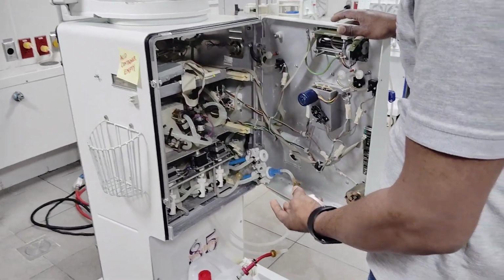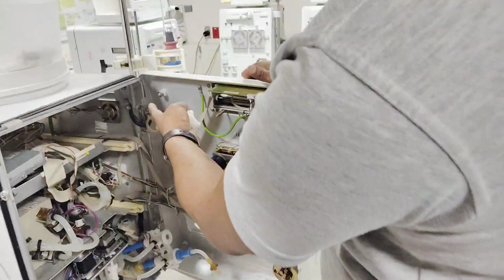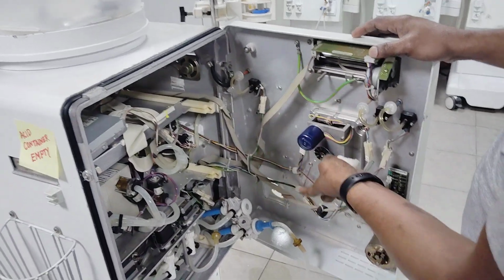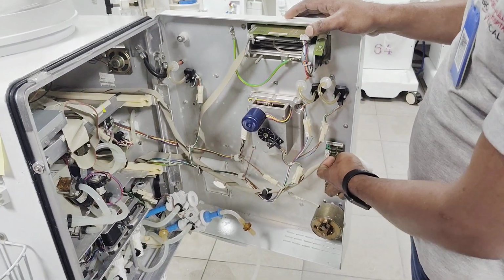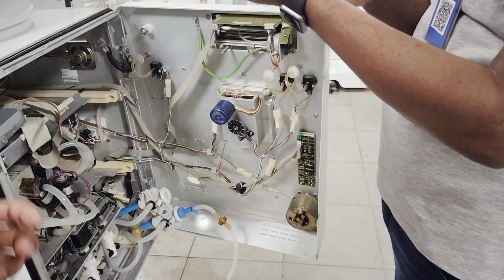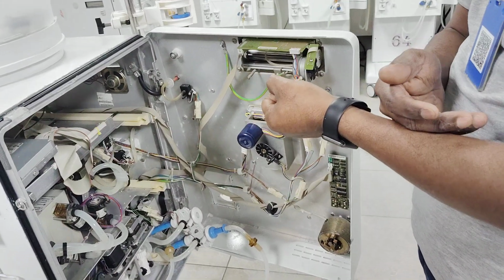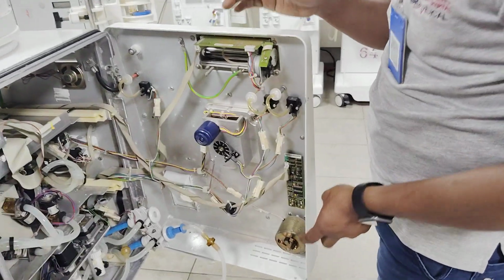Okay. And here, if you see the blood side, this is called the complete blood side. This is for the fluid side. Now we see the blood side. On the blood side, you see the blood pump, and this is called SAD, the safety air detector. The blood passes through that one. In case of any air passing, it will immediately alarm and stop, because the patient should not get air inside their body. If that happens, the patient will die also.